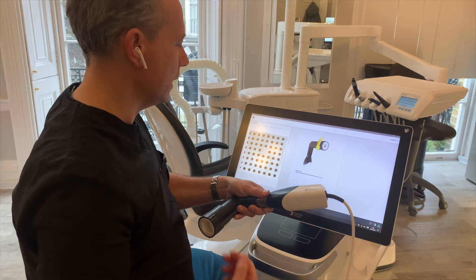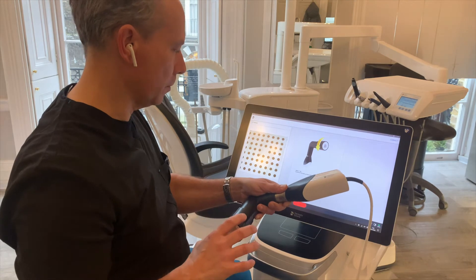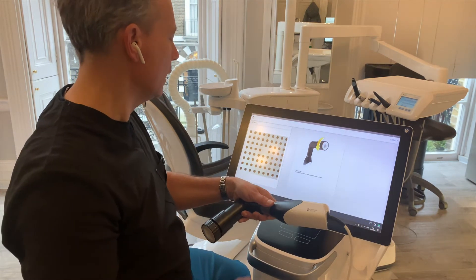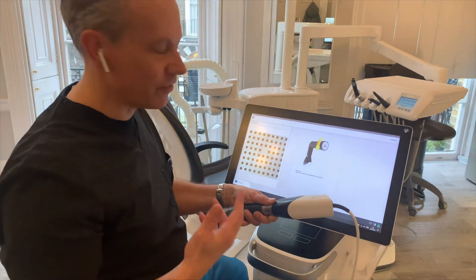If you say okay to that, it's now capturing that image, and then we unscrew the base of the calibration set just one step — click like so. It will do this 18 times, so it takes a little while to go through it, but it's actually a fairly quick procedure.